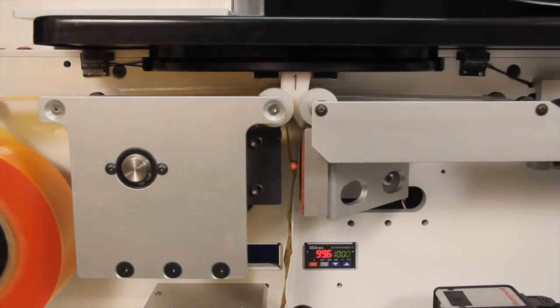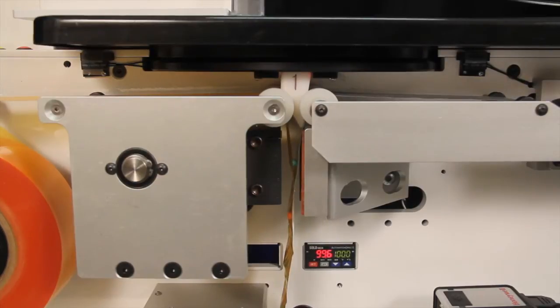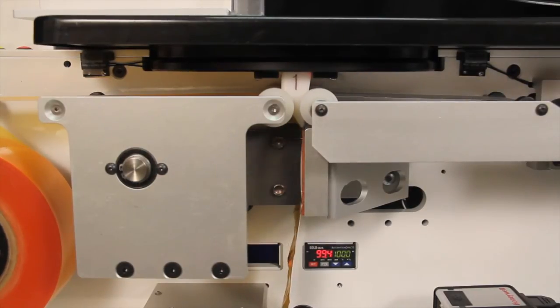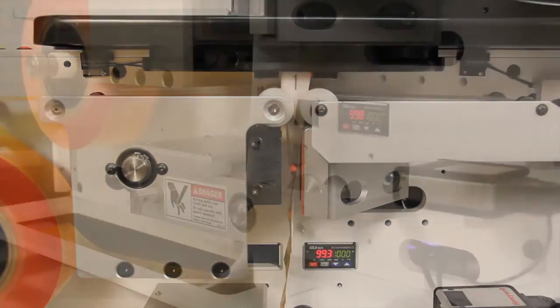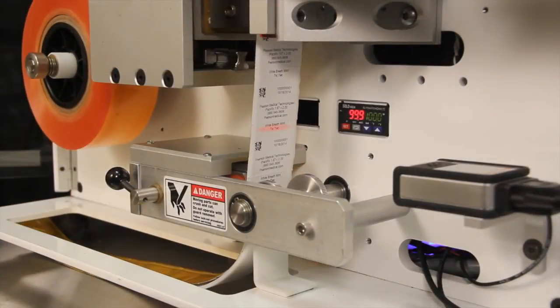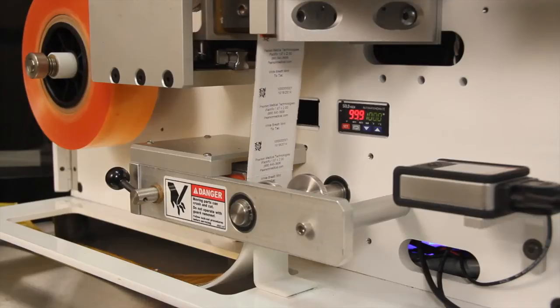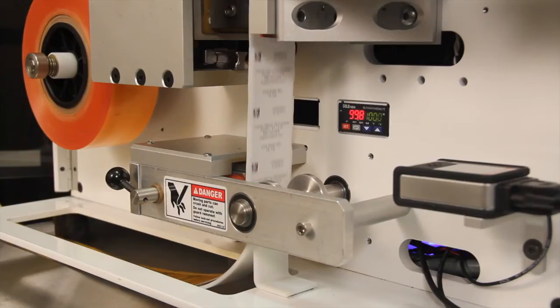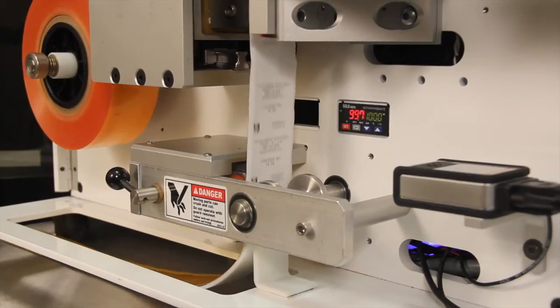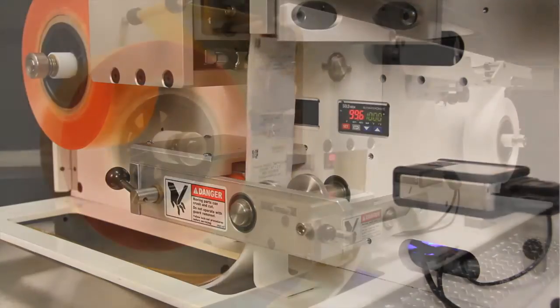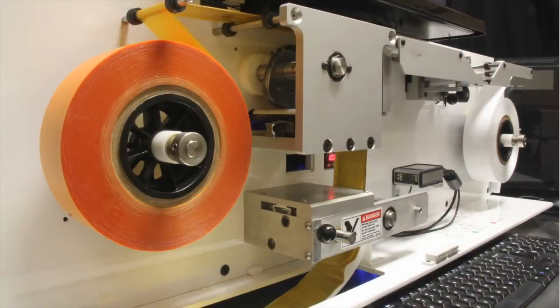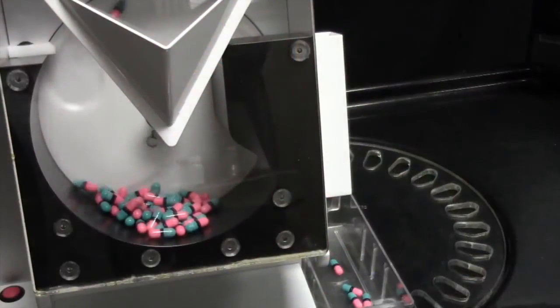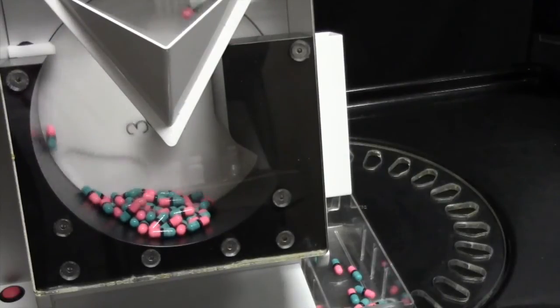The included imprint software allows users to print any size or any type of label on the optional label printer. Imprint works with any other Windows-driven printer, including laser or inkjet printers. This software also comes with a gold standard drug information database, including pill images and tall man lettering. Reports detailing each packaging run are also available for printing in spreadsheet format or PDF.